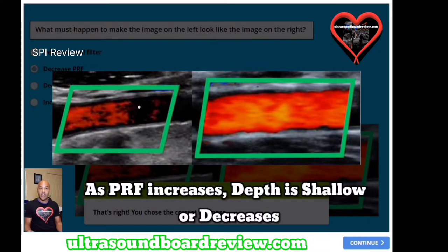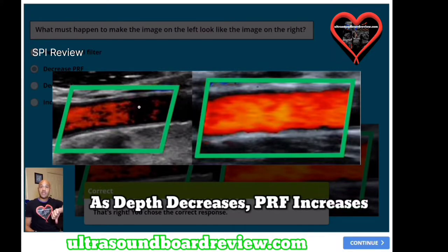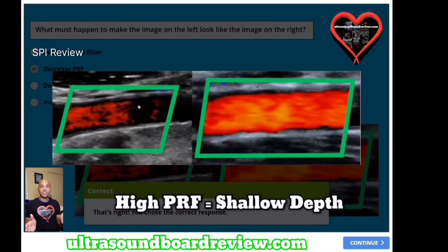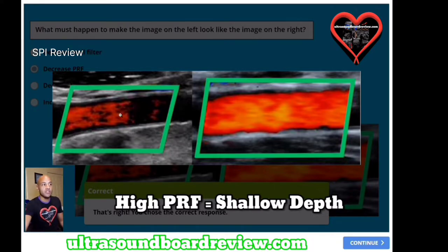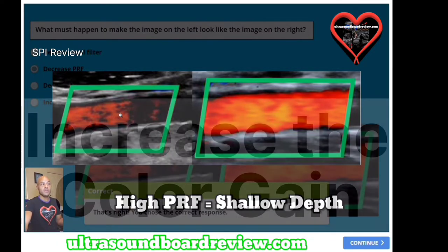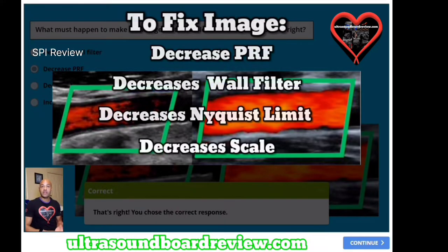Anytime your PRF increases, that means your depth is shallow. PRF and depth are inversely related — meaning they're the opposite. So when your depth decreases, meaning you're more shallow, your PRF increases. If your PRF is high, that means you're looking at a more shallow region, meaning you're not getting a whole lot of pulses coming down into this region here. The only other way to fill in color without adjusting settings is to increase your color gain. So you have to decrease your PRF, which also decreases your wall filter, Nyquist limit, and scale.